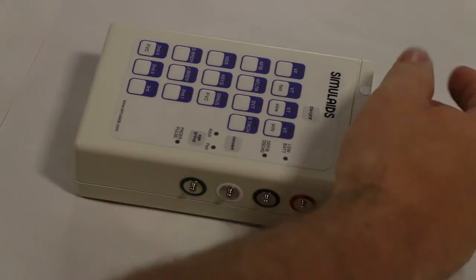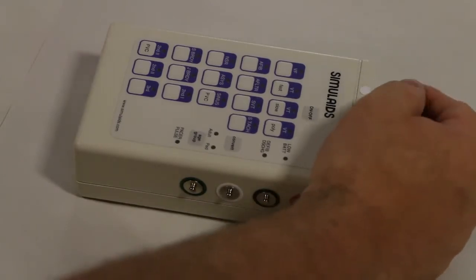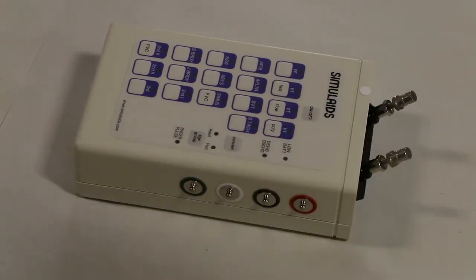Once the posts are in place, attach the color coded leads from the ECG to the sites that match on the box as shown.